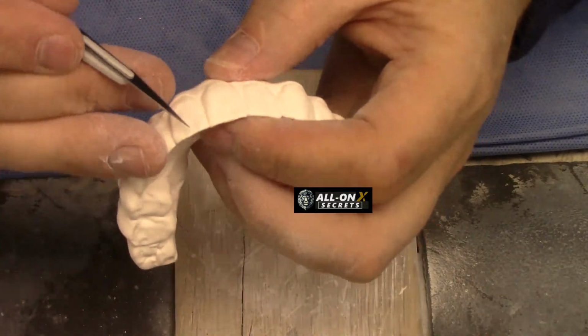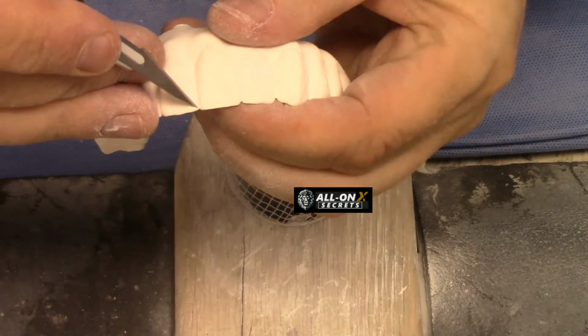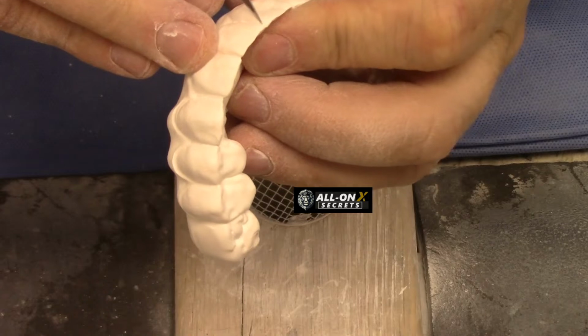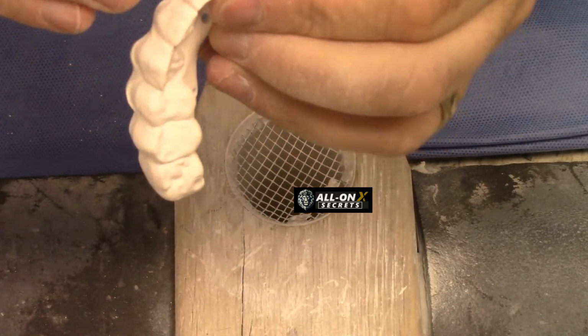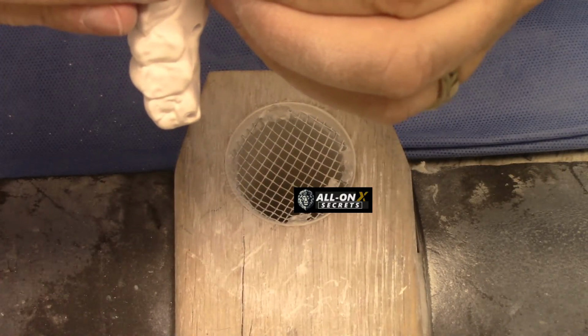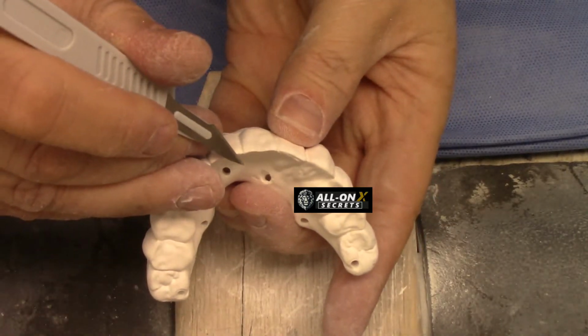So again, I'll come in like this, come in like that. I'll just deepen it. And then I'll come on the back side here.